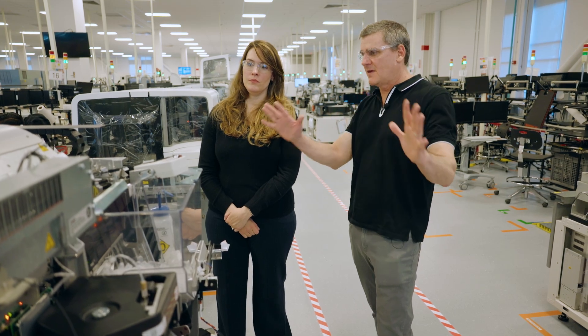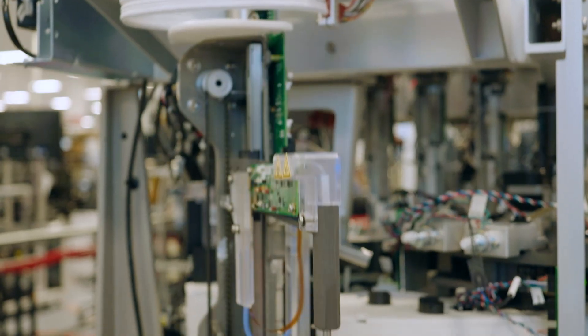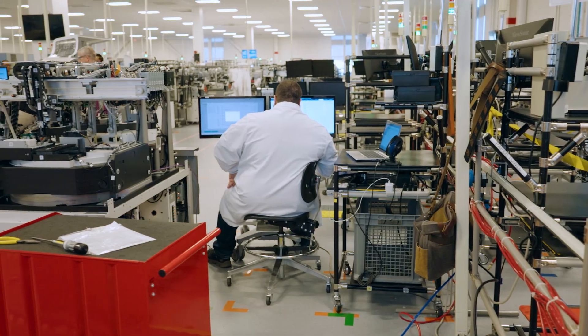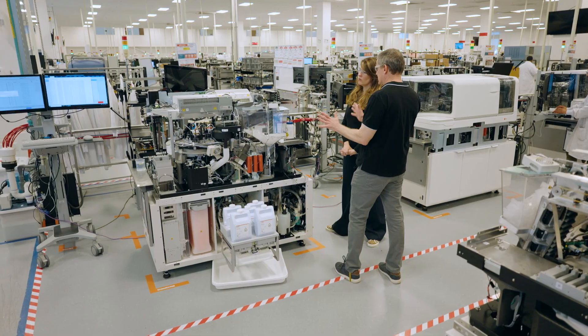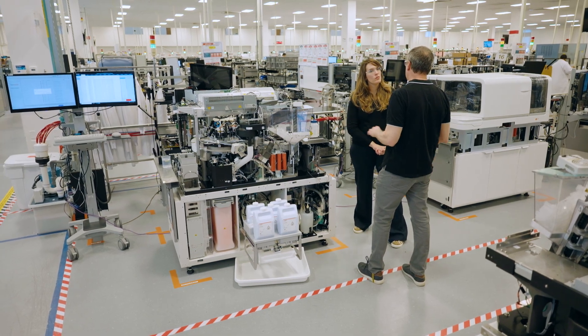Our job is to simplify this as much as possible. All of these mechanisms have very specialized purposes and we can't just put them anywhere. We really try to cover as much of this as we can just to keep it simple for the people that need to interact with it. But in general, we're always trying to make things as simple as we can and let people do the things they need to do so the lab tech in the field can do their jobs well.